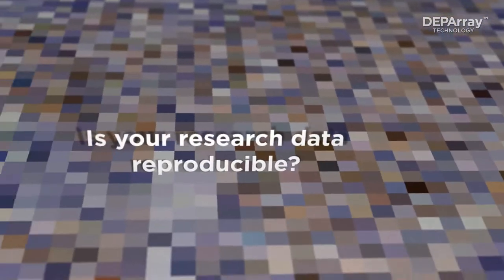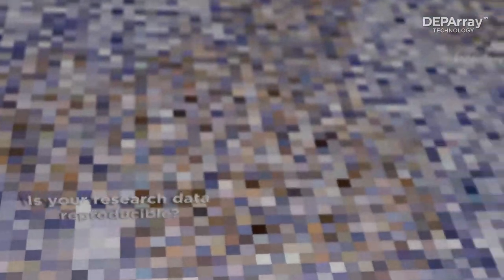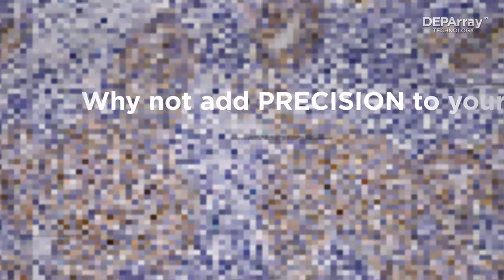You can still achieve precise genetic variant analysis based on tissue digitalization with DEP Array technology.